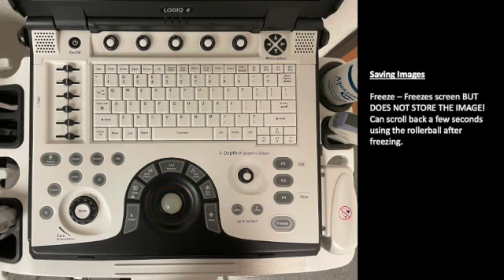Last, let's talk about saving images. Saving images is important, especially if we're going to be billing for them and needing to save them. Freeze will freeze the screen, but it's super important to remember that freeze does not store the image permanently. So if you're trying to identify a structure, you think you see it and then it's gone, press freeze and you can scroll back a couple seconds and look and see if that was what you needed. And if it is, then you can make some measurements and things like that, but freeze does not store the image. You have to press P1.